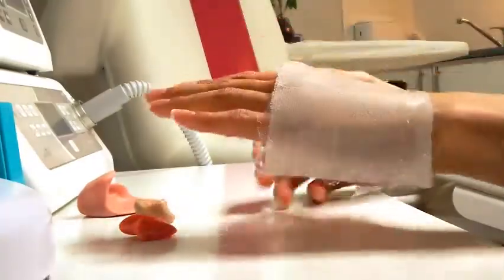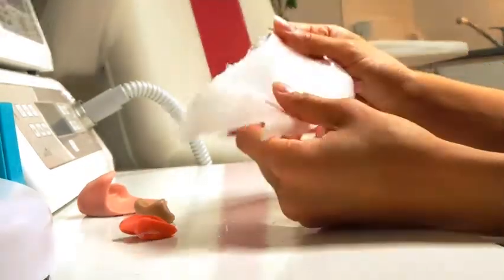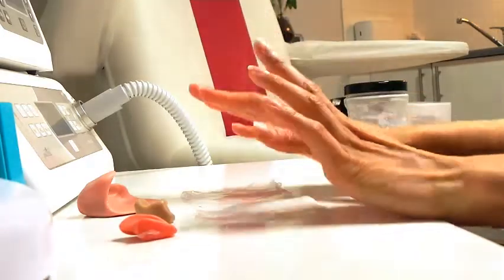This is great to use to cover the toes, cover the whole foot, or whatever you want to do with it. There are lots of options and availability — you can cut through it, stick them together — it's fantastic.